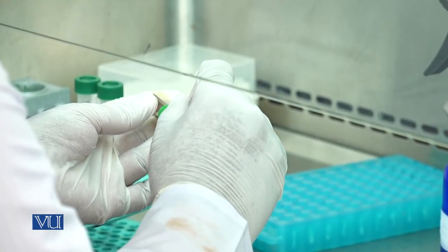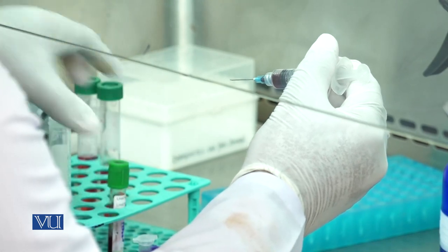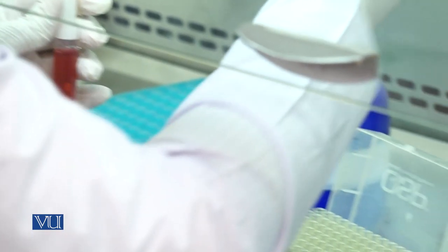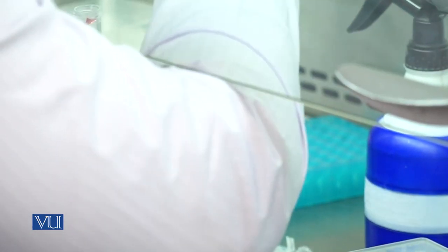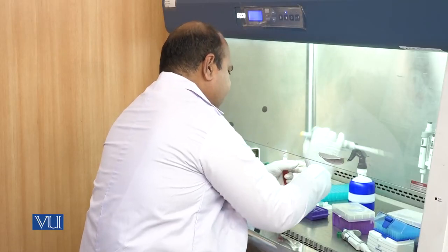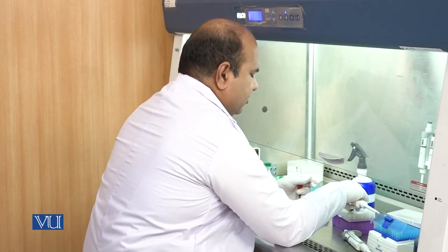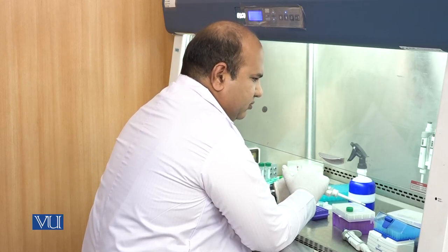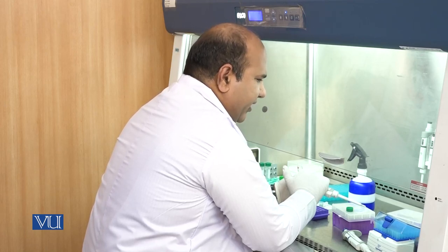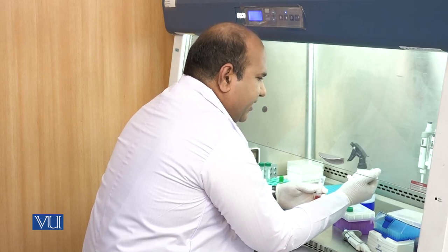We will take around 400 to 500 microliters of blood and add it into the medium. Now add 100 microliters of PHA — PHA is an abbreviation of phytohaemagglutinin. PHA is a stimulant. Your blood cells are not dividing at the moment; they are differentiated cells. So to make them divide, we have to add a stimulant, and PHA is that stimulant.